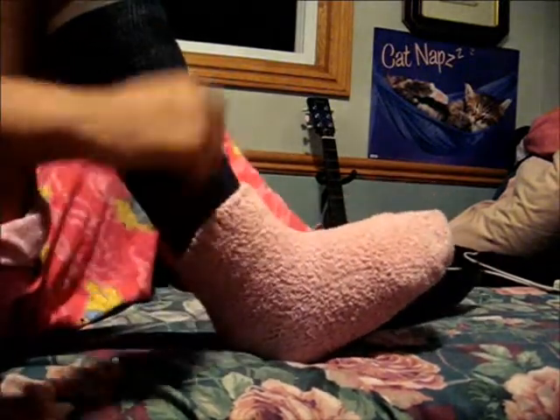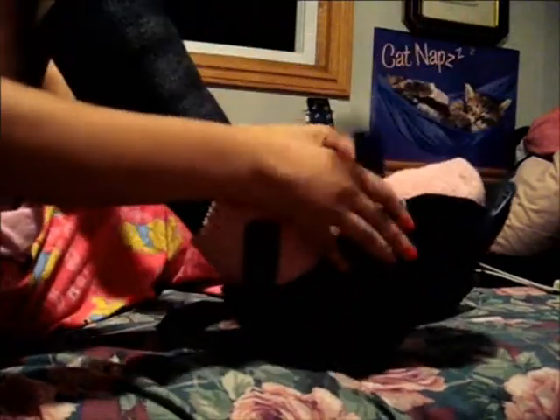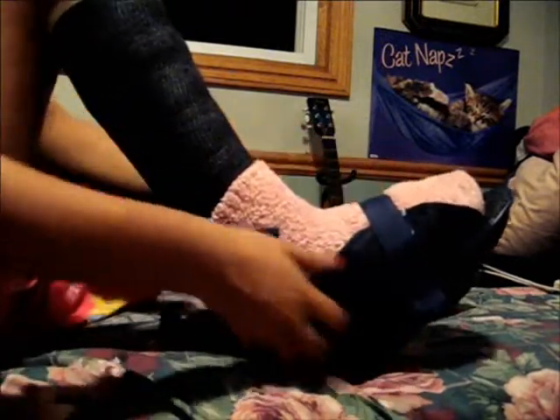That's if you go outside. Sometimes it can just get a little comfy if you feel like it. I know sometimes when you sleep you're kind of scared you're going to bump it somewhere, so it's nice to put on the sock.